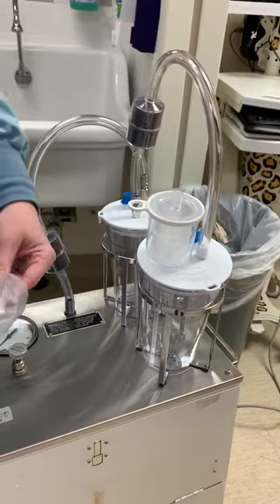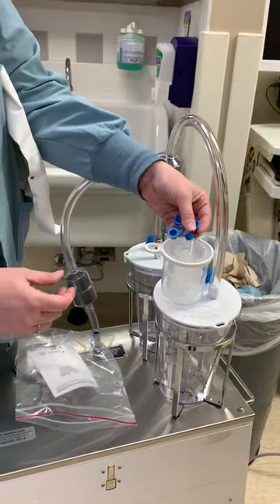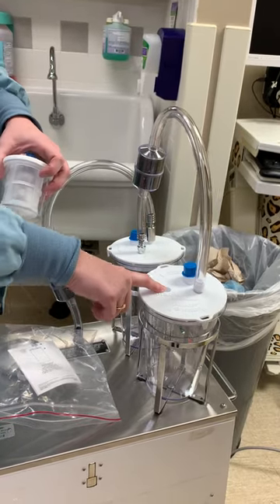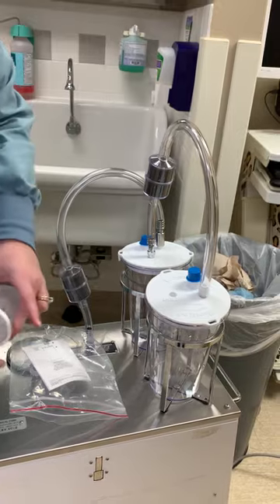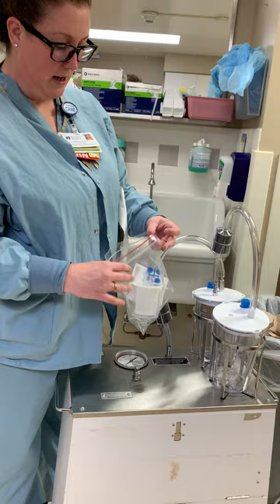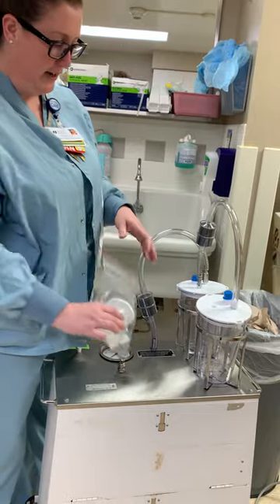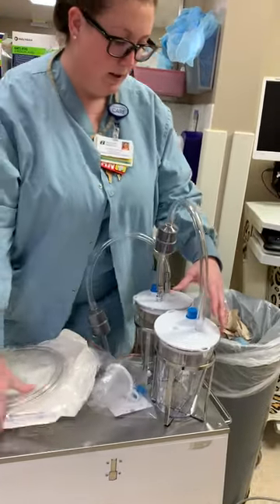You have blue caps in your bag. These are to put on your specimen. You'll put one on the end also, and then you can stick one in there where it says 'patient.' If this needs to be sent down to histology, cytology, or wherever you send your specimen, you can just send this whole container down.